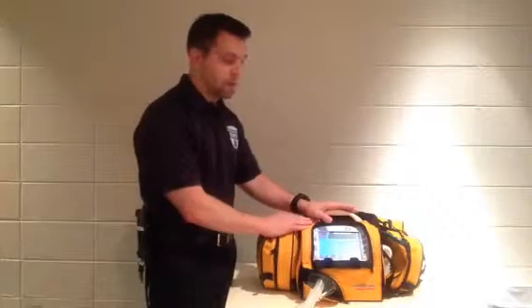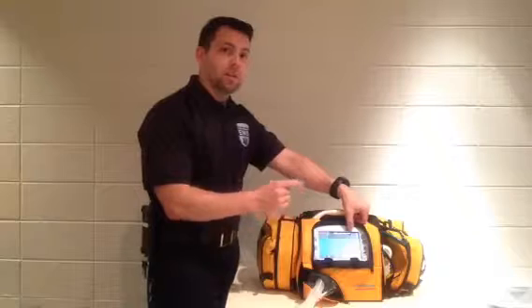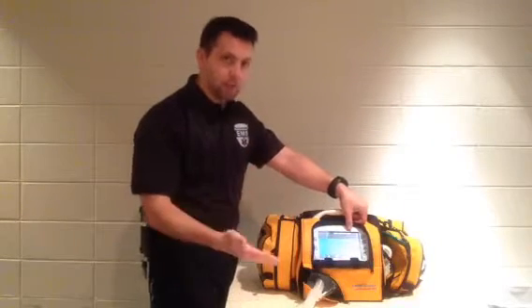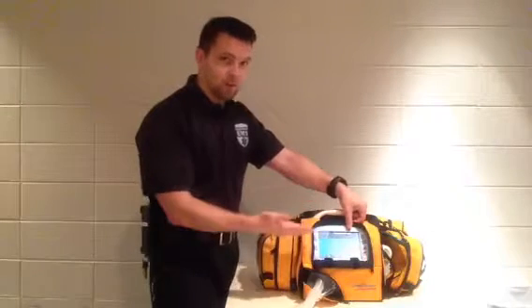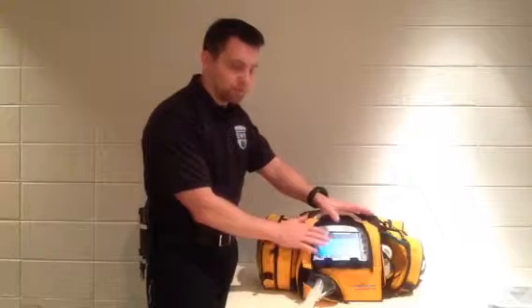Alarm plus a visual alarm. And you can hit accept for the alarm, but you're going to clear the highest priority one first, and then you're going to clear the whole stack of them. So you might have 7 different alarms that you've got to clear through the screen before it brings you back to the main home screen.